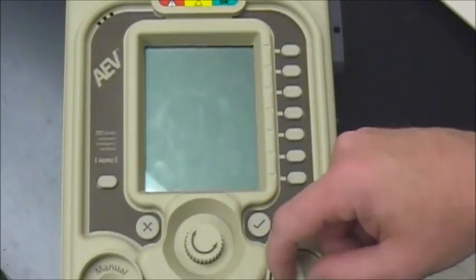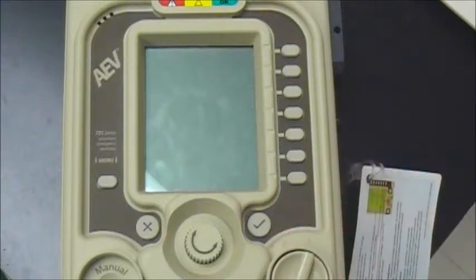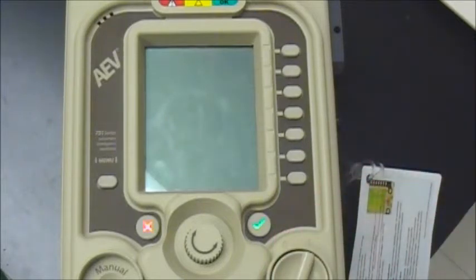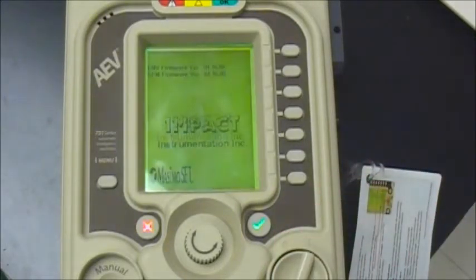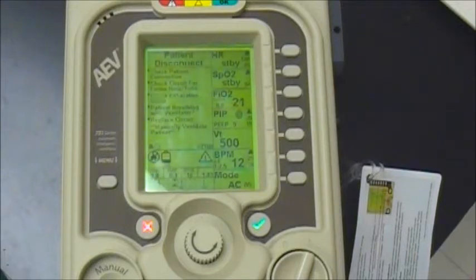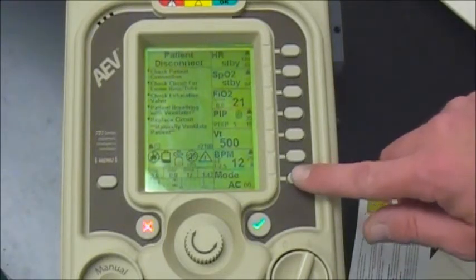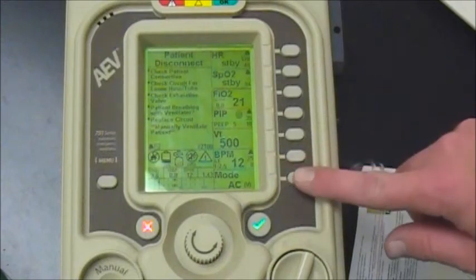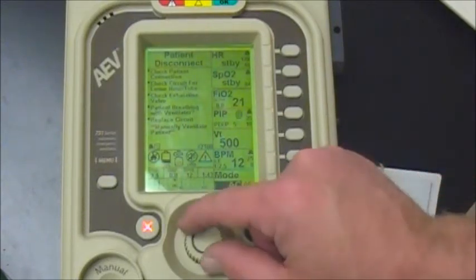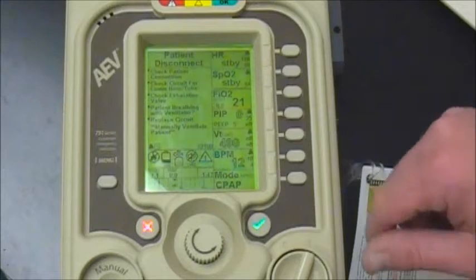If you want to set up a BiPAP mode for your patient in exacerbation of COPD or CHF, it's very easy to set up, but you're going to have to do a couple of extra settings in addition to what you normally set up for CPAP. The default setting is AC, so let's change that to CPAP to get started completing the rest of our settings.